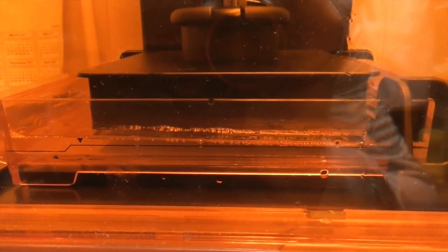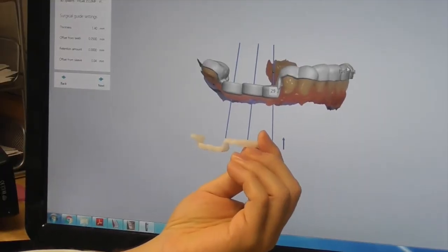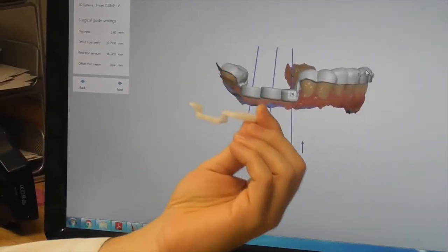So this is a situation where we have designed our surgical guide virtually, and we have created an actual surgical guide that we'll use during surgery.